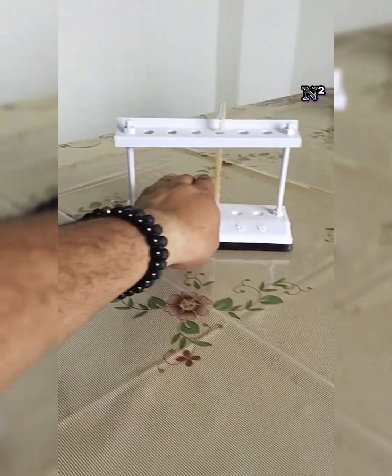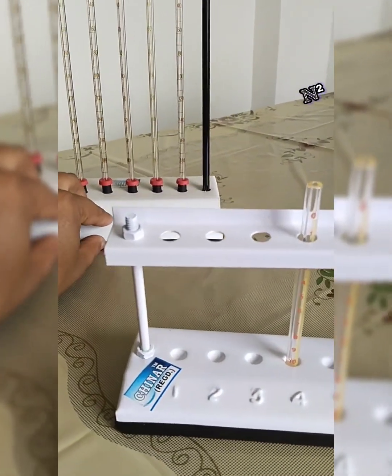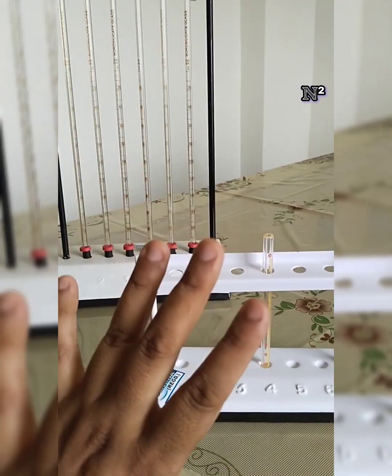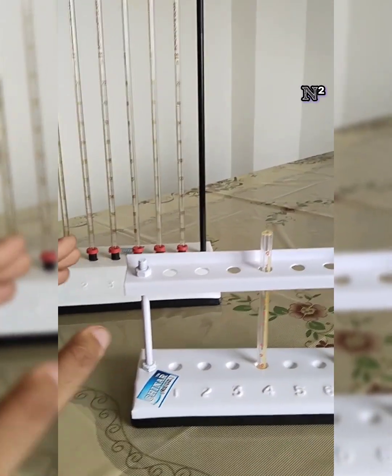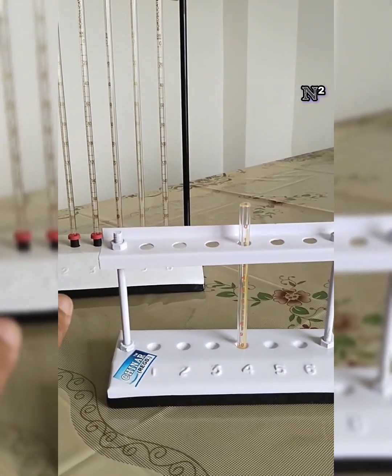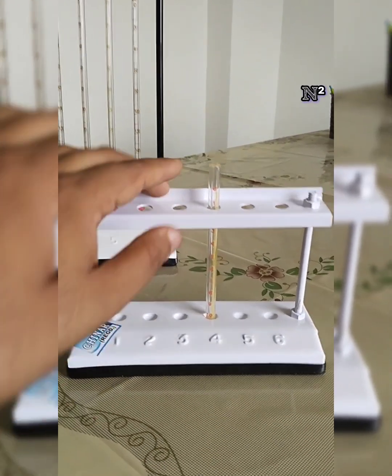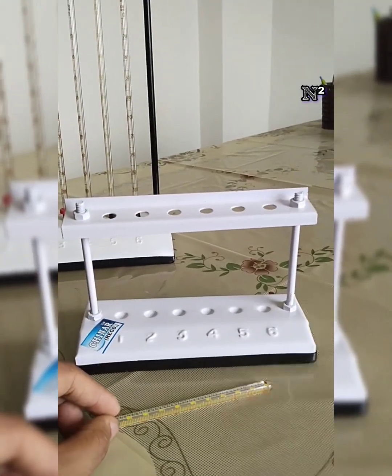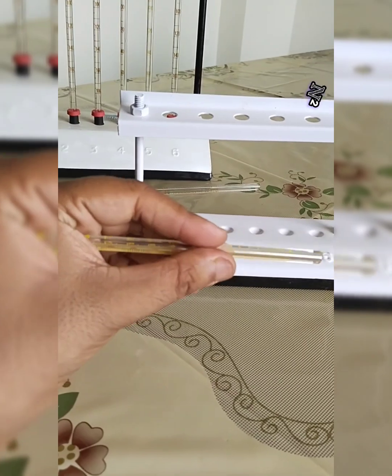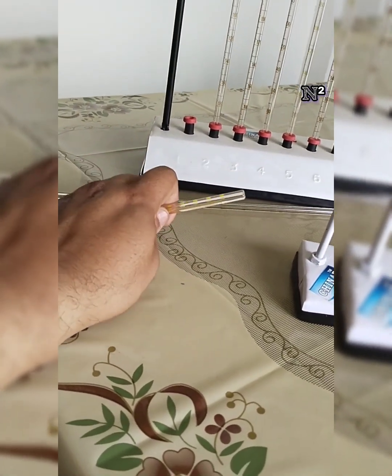Moving on, the next instrument for our discussion is the smaller instrument. I'm keeping these two instruments together to familiarize you with the different features of this instrument. Although these two instruments look similar, you can see the obvious difference between them. This instrument is called the Wintrobe's tube with rack. In this instrument we use a tube, not a pipette as you have seen in the last part of the video.